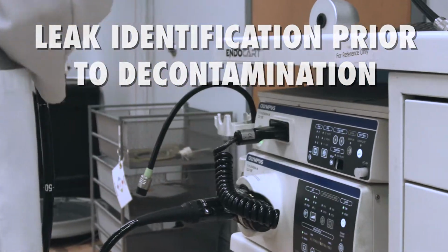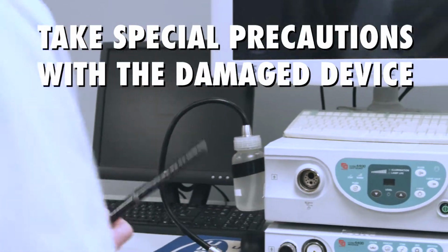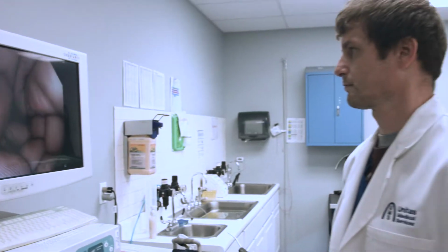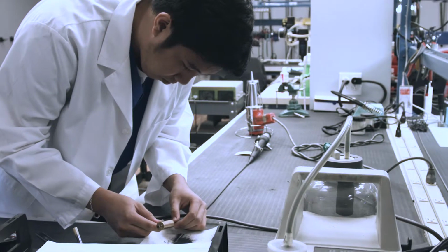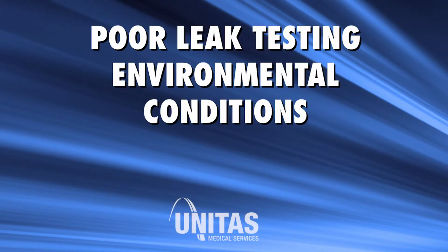Secondly, leak identification prior to the decontamination process will alert the cleaning technician to take special precaution during the rest of the cleaning process. Air pressure will need to be maintained through all subsequent cleaning steps, as if it were a long leak test. This will protect the endoscope from additional fluid damage. Third, effective leak testing will lower the severity and the number of fluid invasions and, thus, reduce the cost of repair. Common leak testing errors.